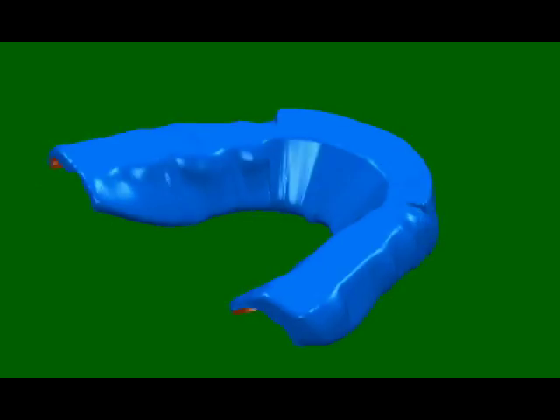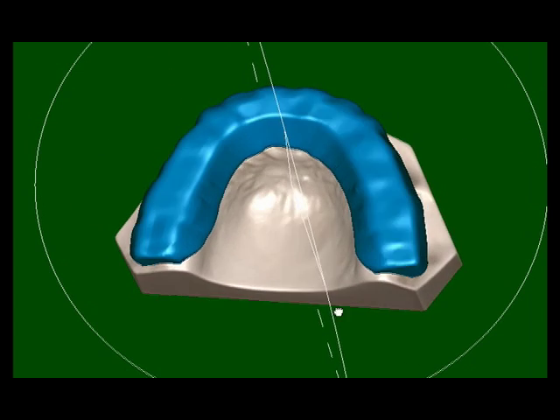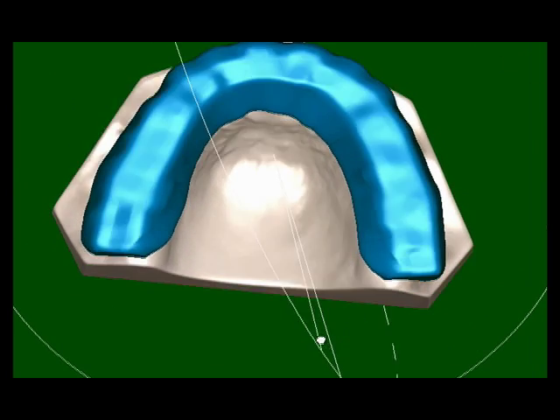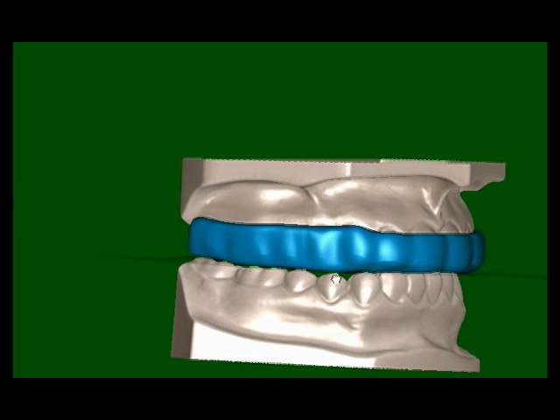A new CAD-CAM method has been developed at Great Lakes Orthodontics to digitally design and produce occlusal splints. The process results in the flattest and smoothest possible surface with the accuracy of restorative CAD-CAM systems.